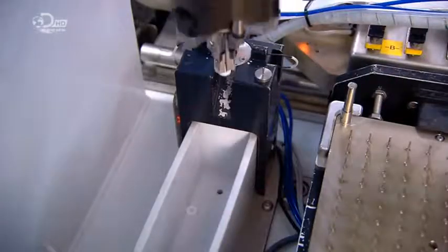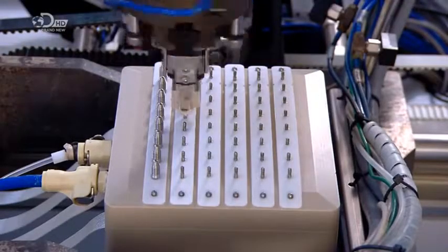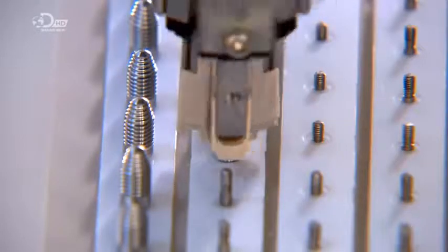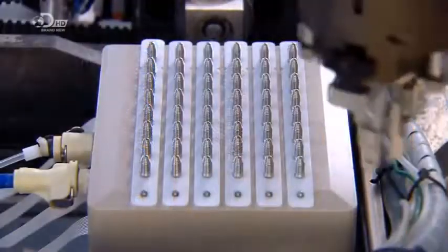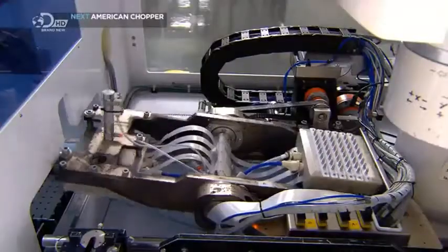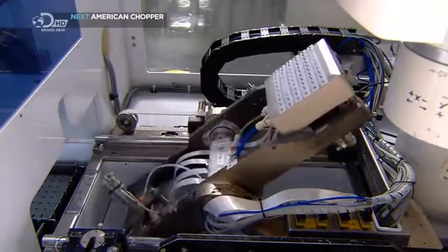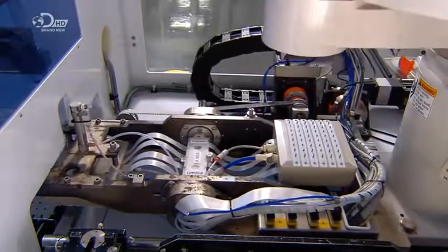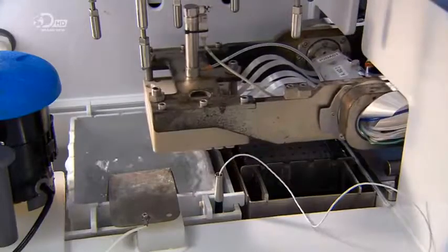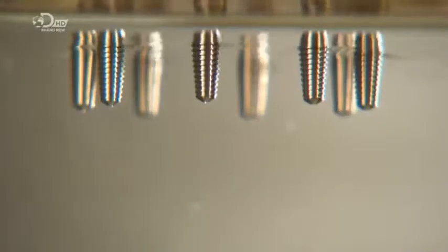The masking collar now comes off. Then implants are taken to another tray and screwed in. This prevents them from falling off as machinery turns the tray upside down to immerse the implants in acid and anodize the exterior. This time the anodizing serves another purpose — it changes the surface to make it more porous. This will improve the bonding of the patient's jawbone to the implant.